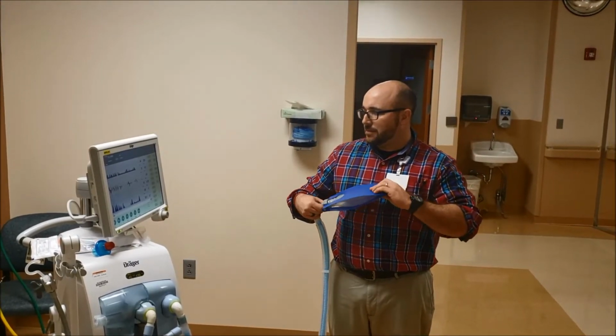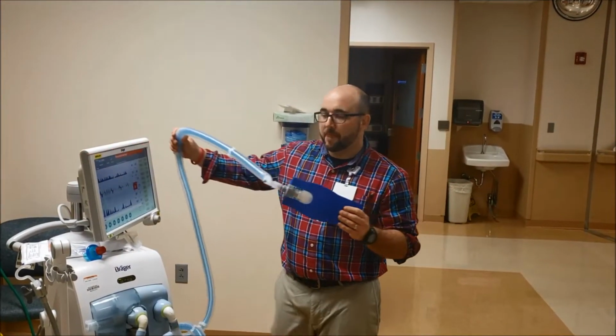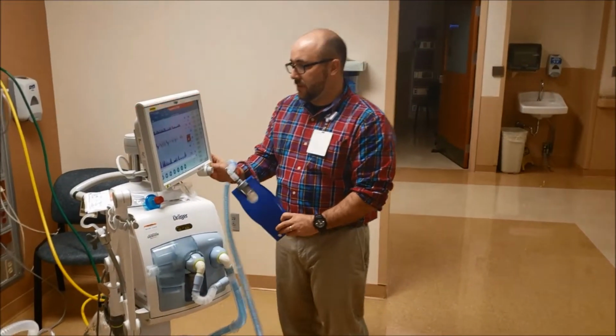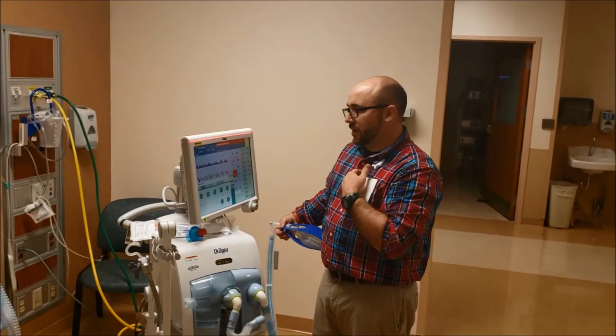I think that is about it for this. You guys have any questions? Is that good? Help a little bit. It has CPAP on it, right? CPAP too. Yeah, okay, I can show you CPAP, because sometimes they have us do that. Lots of times they do that. And that's what we're going to talk about, this machine over here, where it's really nice for this.